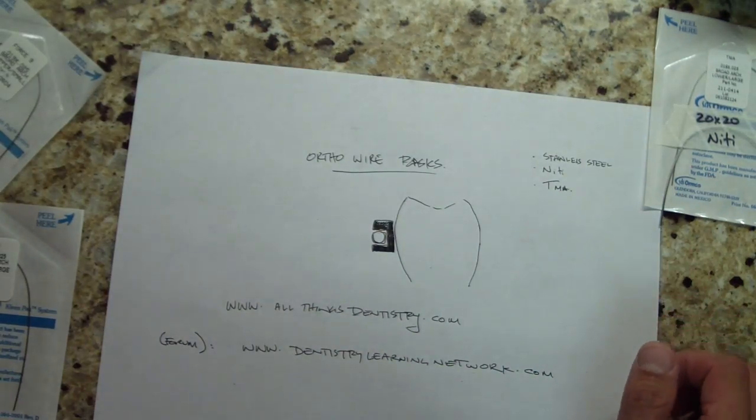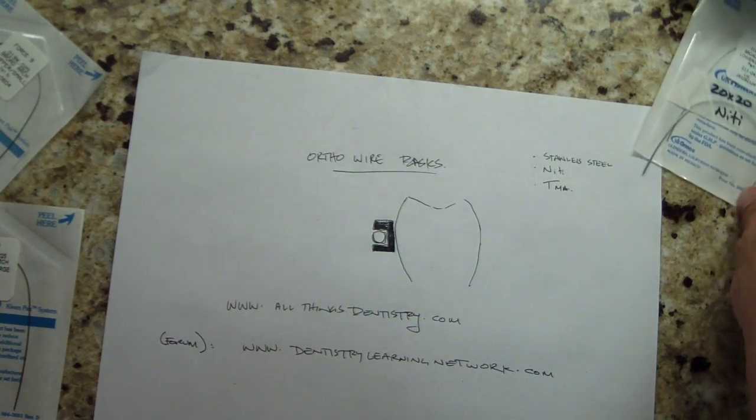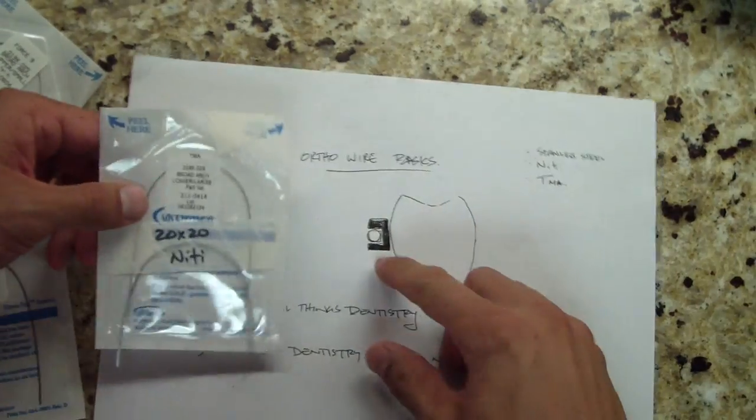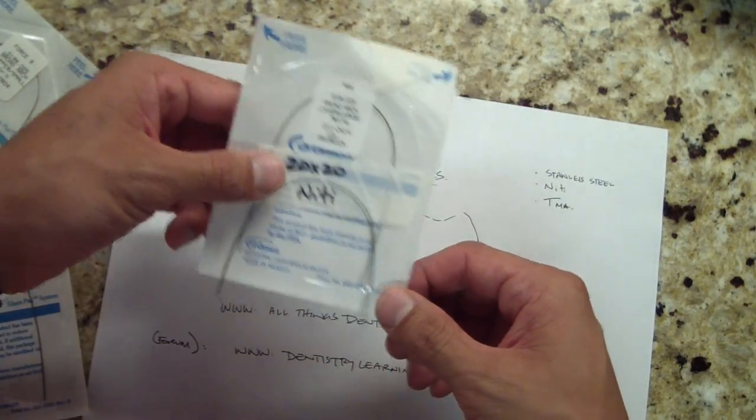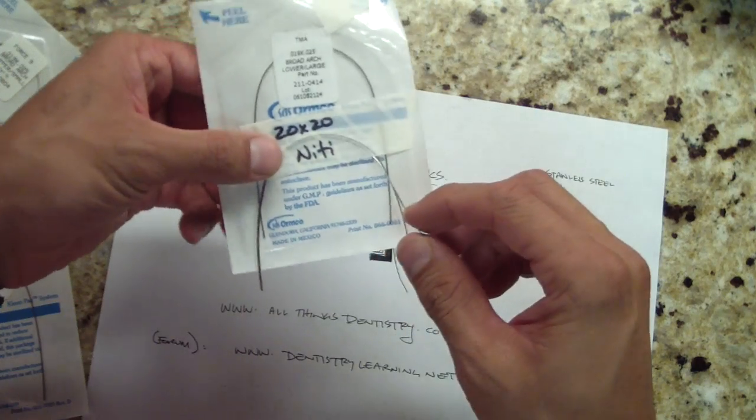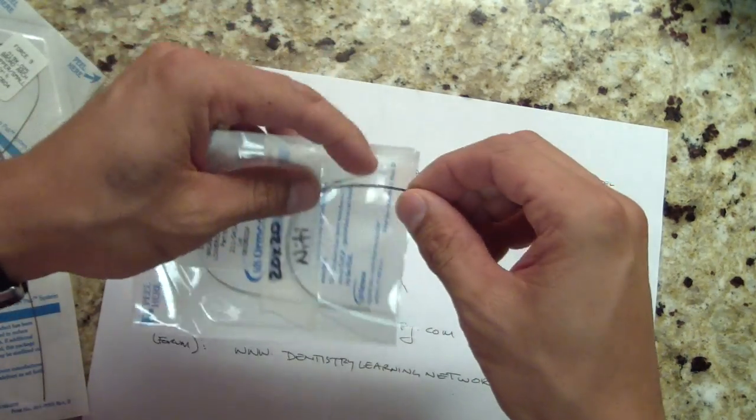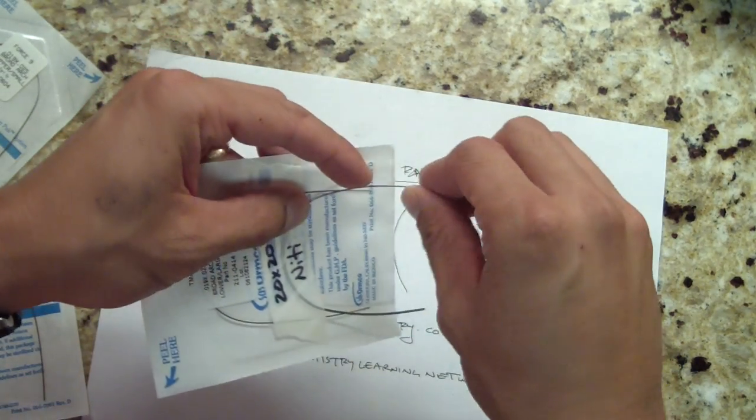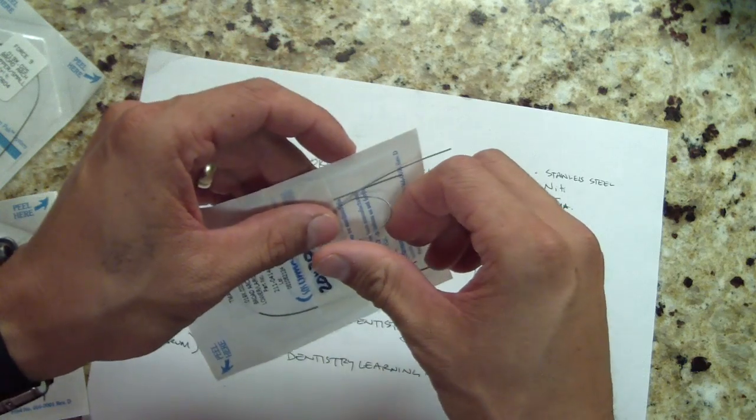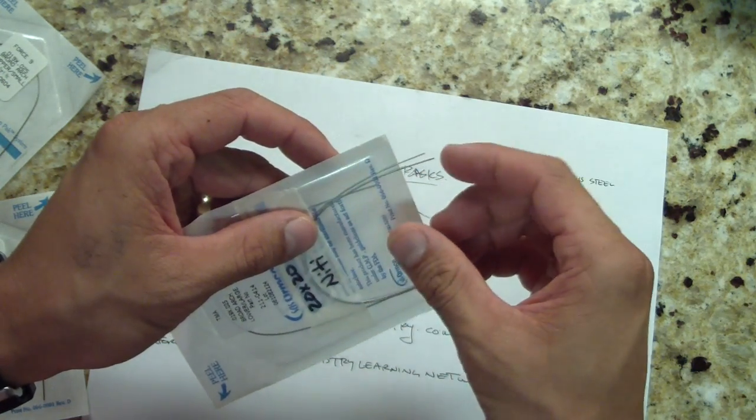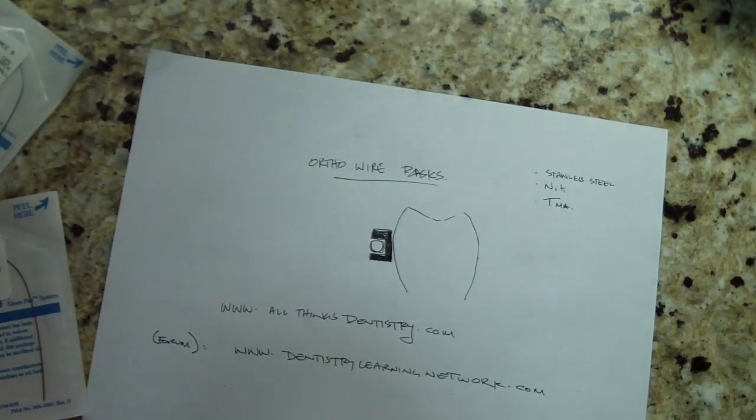Next, let's talk about Ni-Ti. Everyone knows about Ni-Ti. They're different sizes - you can get round wire or square. Here we have 20x20 Ni-Ti. If you're watching this video, you should know that you can get some pretty crazy bends and it just goes back to normal shape. But one thing you might not have known is this really cool one.